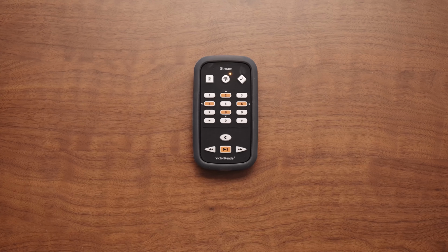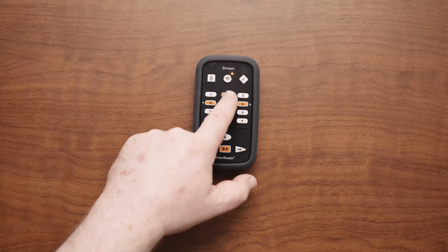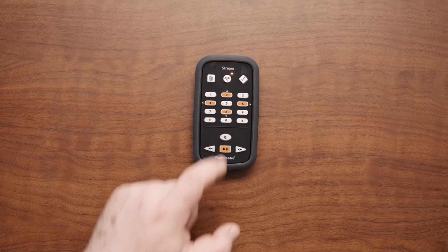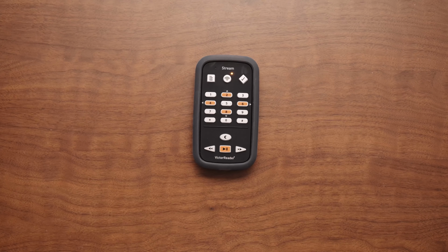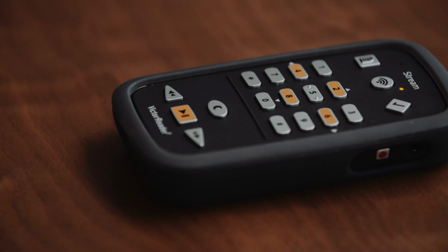To enter a character, press the number key associated with that letter the appropriate number of times. When entering successive letters on the same key, you need to pause until the VRS announces the letter. For example, to type the word cab, you press key 2 3 times, then pause until you hear C. Then press it once again, pause until you hear A, then press it twice to type the last letter B.